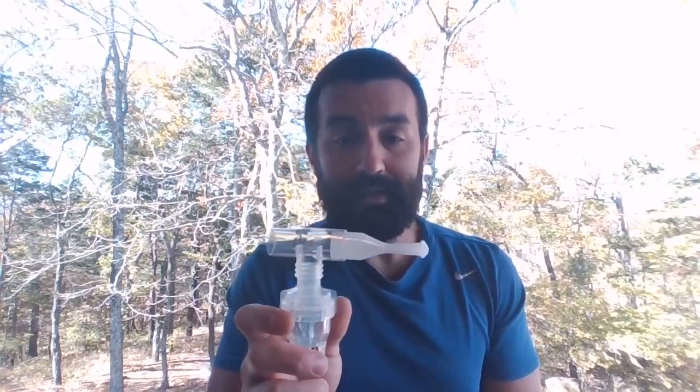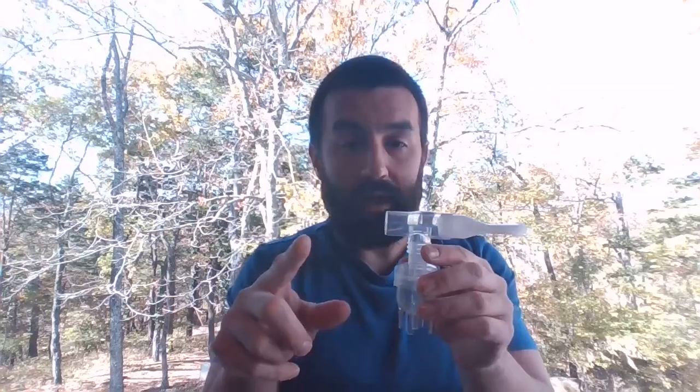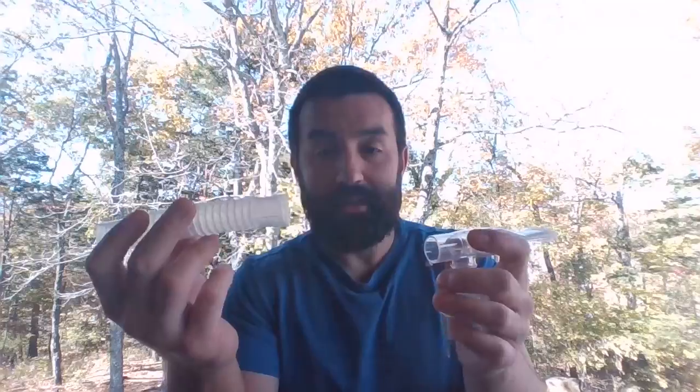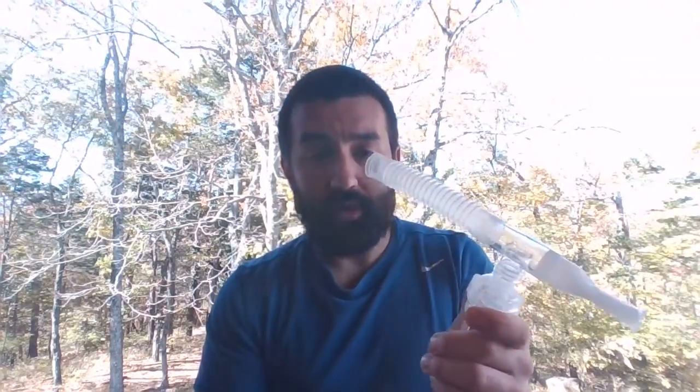Now, I could go ahead and start breathing on this right now, and I get medicine, but these particular jet nebs continue to emit an aerosol continuously. It's not a continuous neb in the sense of what we're trying to do for status asthmaticus and giving super doses of albuterol, but it continues to emit aerosol even in between breaths. We're likely wasting a whole bunch of medicine out of this distal end of this T-piece. So we always incorporate a 6-inch piece of flex tubing that's going to come with these, and this would be our setup for a small volume neb.